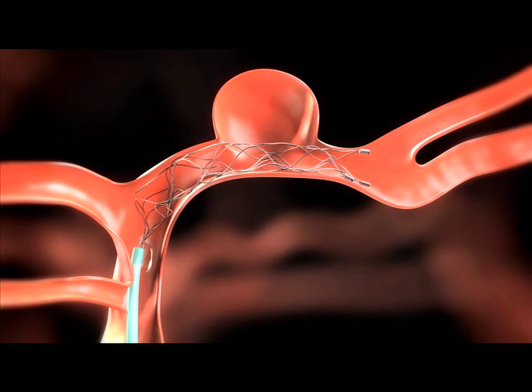Retract the micro catheter to where the detachment zone is outside the micro catheter. Tighten the RHV to prevent any movement of the push wire. If angiographic monitoring reveals undesirable positioning, repositioning of the Solitaire AB is permissible two times.